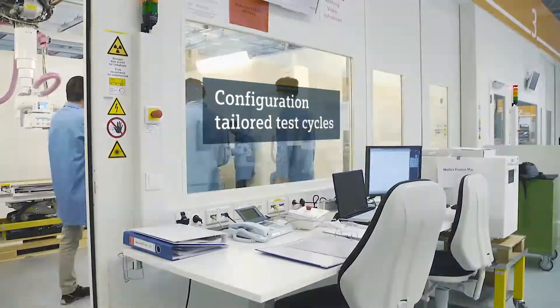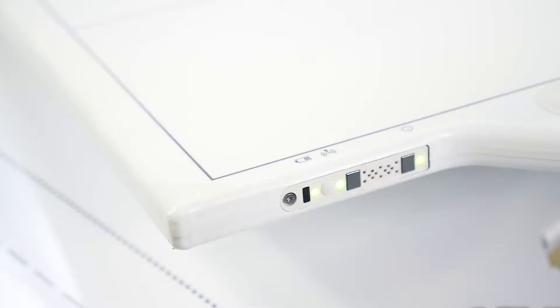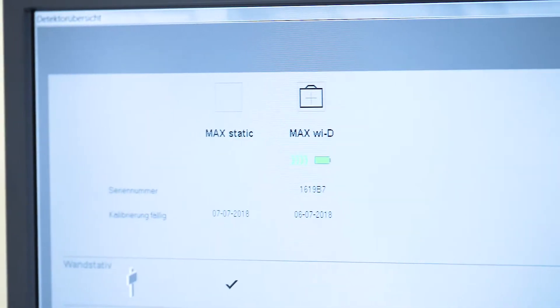The Max detector alone is intensively tested for 10 hours. We test not only the image quality and functionality of the detector, but also the WLAN connections and their stability.